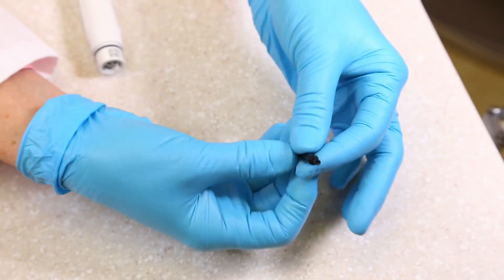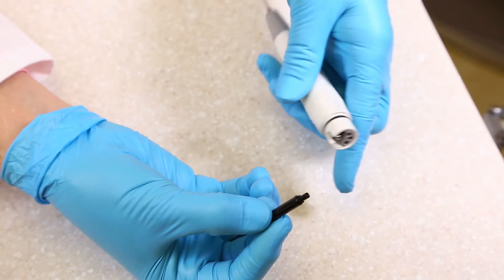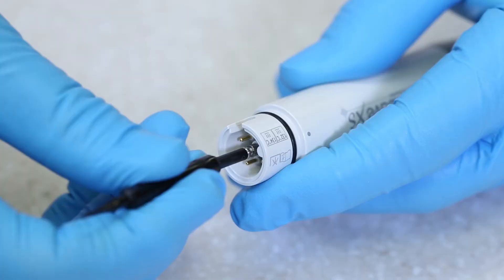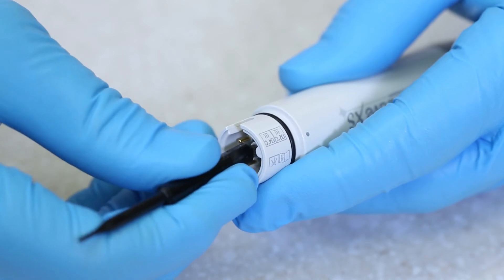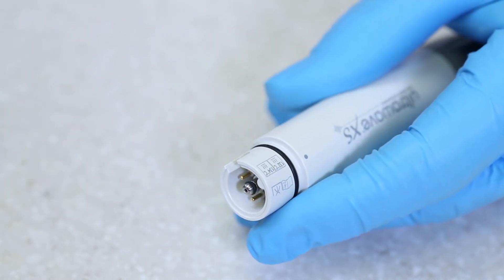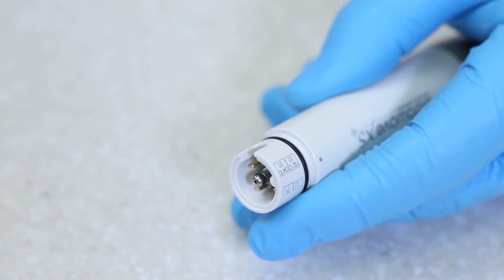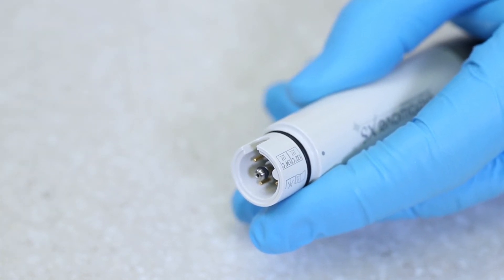Slide the hollow tube over the thin rod from the pointed end to the O-ring. Firmly hold the concave end of the thinner rod against the water connector. Push the tube against the O-ring and off of the thin rod and onto the water connector. The O-ring should seat in the water connector groove.